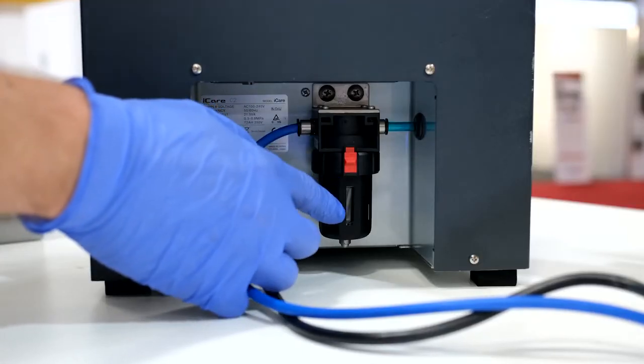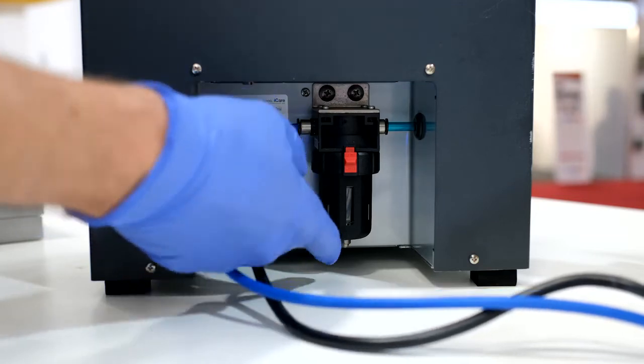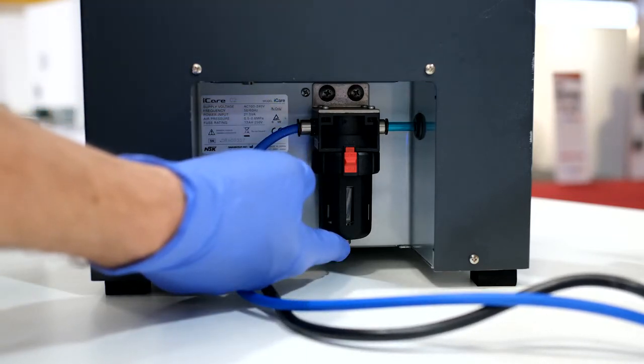When water accumulates in the air filter case at the back, press the drain button at the bottom of the case to drain the air filter.